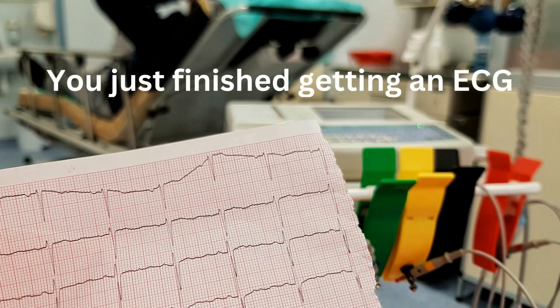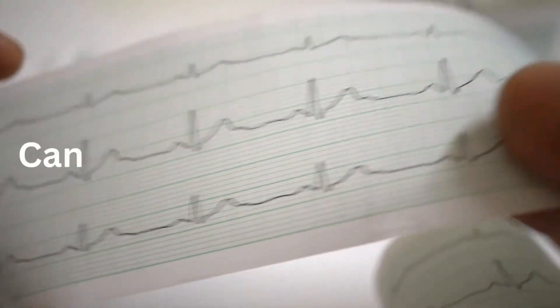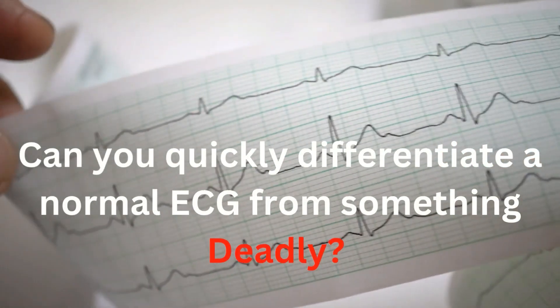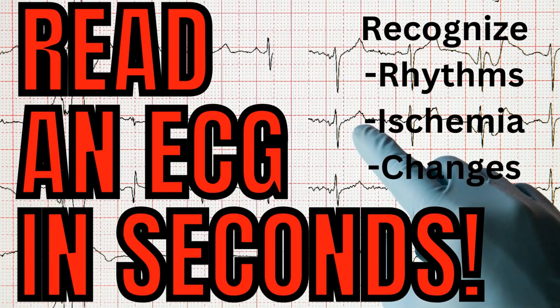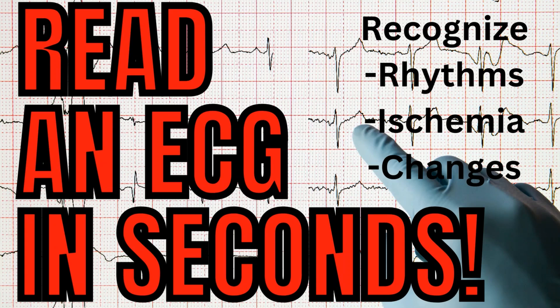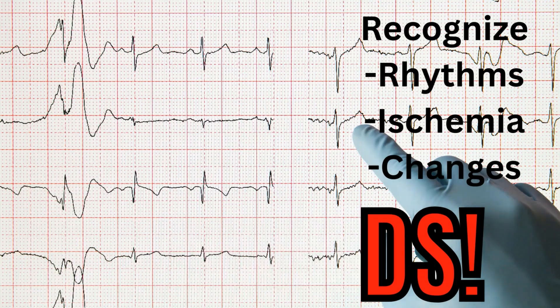You just finished getting an ECG on your patient, or your tech hands you an ECG for your patient. Can you quickly look at it and differentiate a normal ECG from something deadly? Do you know when to escalate the situation and ensure that your provider is at bedside to look at the ECG? As a new ER nurse, you need to be at least able to recognize certain rhythms, recognize when ischemia is occurring, and whether there are changes to the ECG.